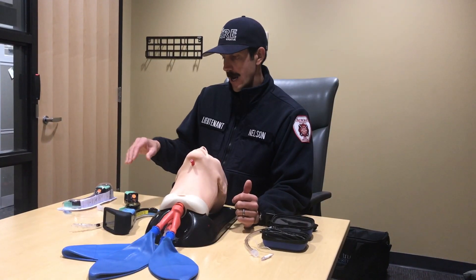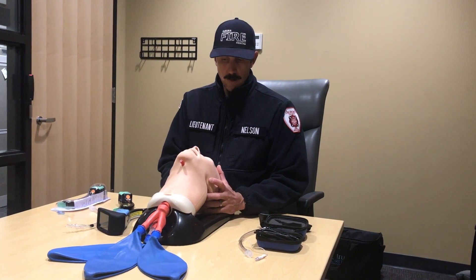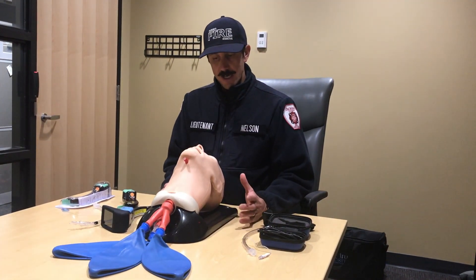The last problem AirTrack has identified is that many patients aren't being pre-suctioned. Keep that in mind — how well the patient has been suctioned and how much foreign body or secretions are in the airway can directly affect your success with intubation. They recommend having suction standing by and pre-suctioning these patients.